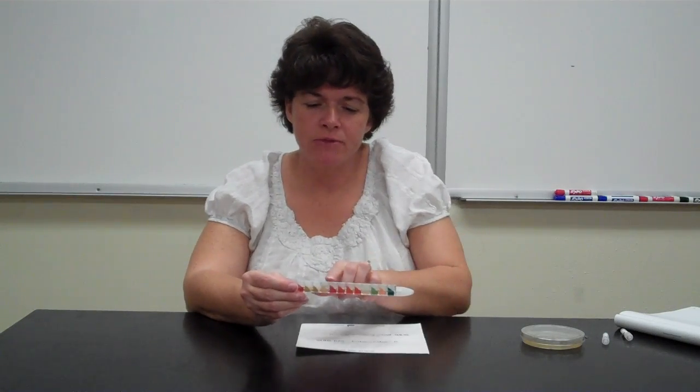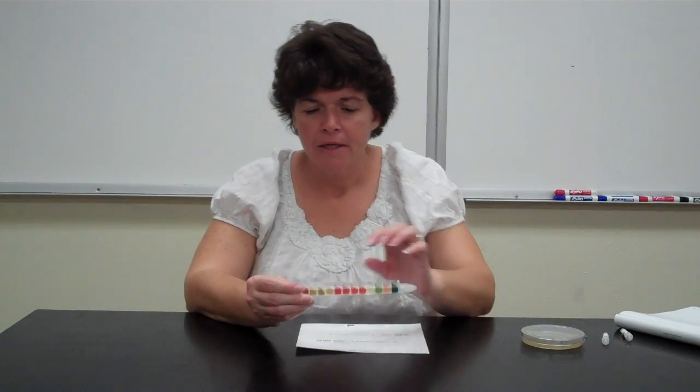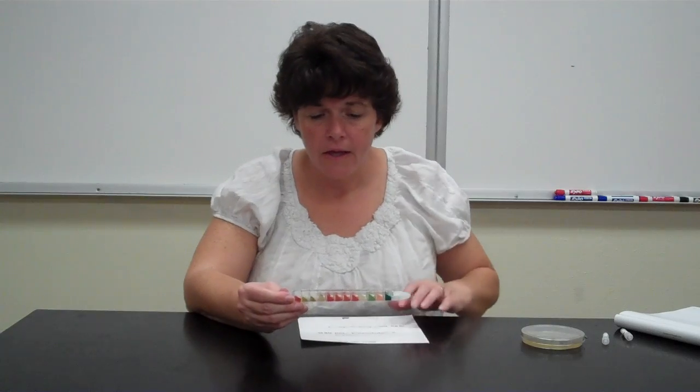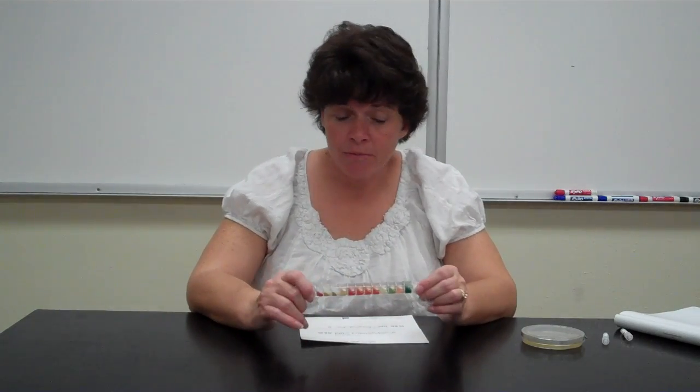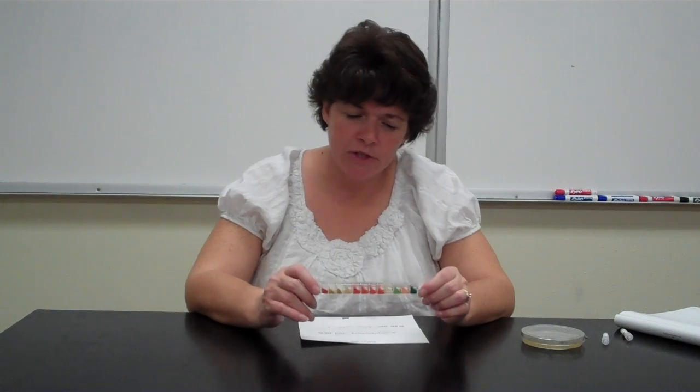And then maybe this one came up positive and that didn't, and then we'd add a number, we'd change the number. Okay, so it works pretty well. Sometimes we have 100% success and other times we don't. Sometimes there's just errors here and there. So with this, like I said, you'll have the exact species from the code book that I've given you.